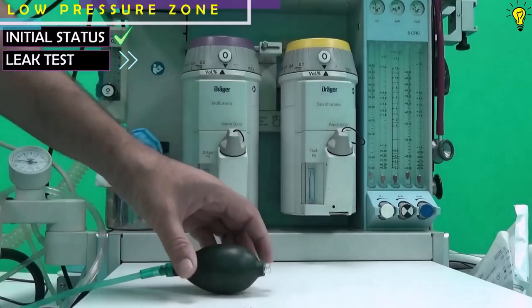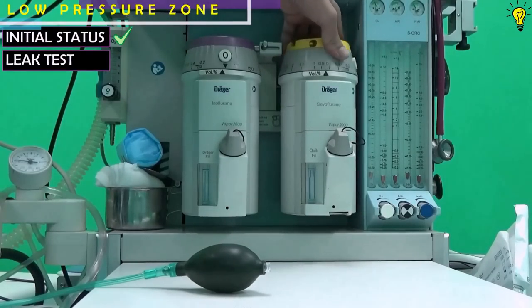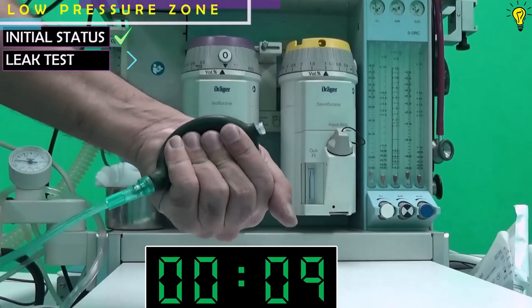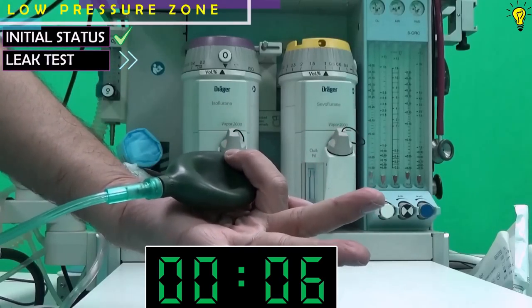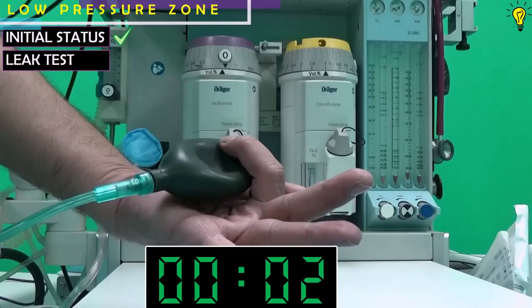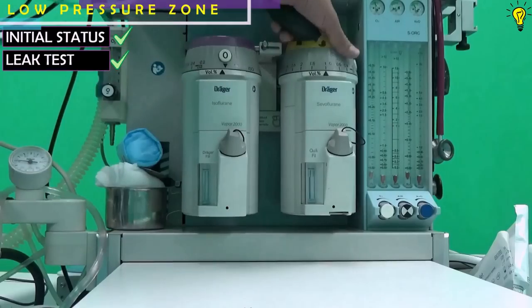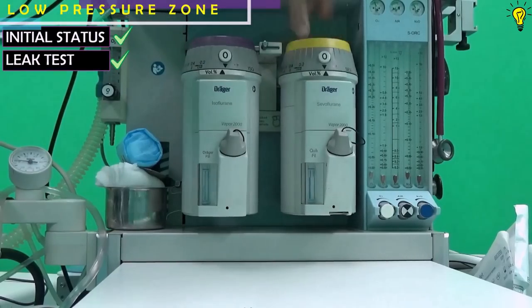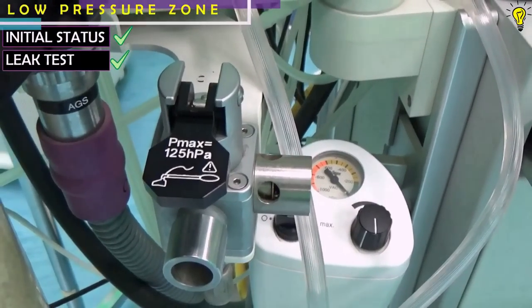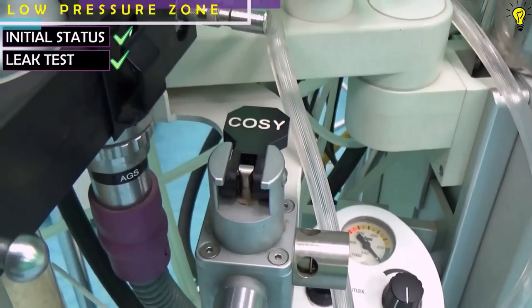Next, turn on one vaporizer and squeeze the bulb again until fully deflated, then observe for 10 seconds to see if it re-inflates. It has not reinflated, so there is no leak in this vaporizer. Repeat this process for the other vaporizer as well. Make sure that at the end of this test, you switch the circuit back to circle system.